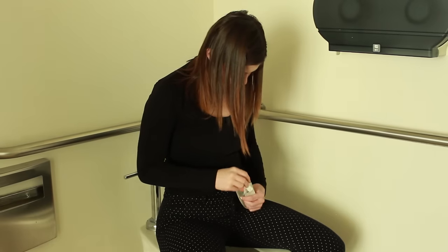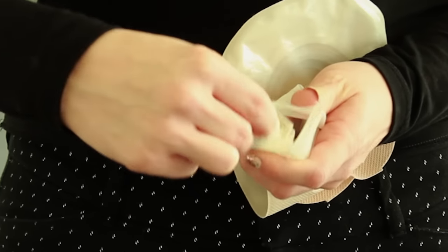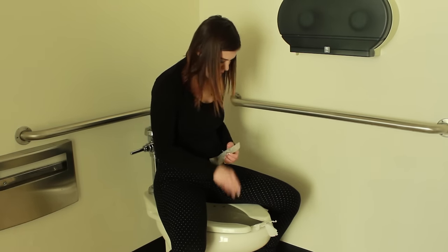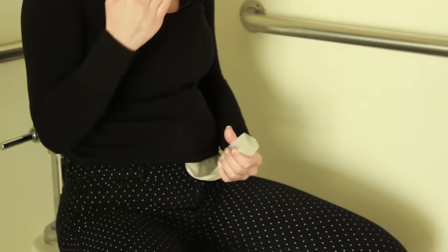I then take some toilet paper — I generally just crumple it up, put it inside the outlet, and get everything clean. Get all the residue outside of the outlet of the pouch. Pop that in the toilet, smooth out any of the air, keeping a low profile as possible.